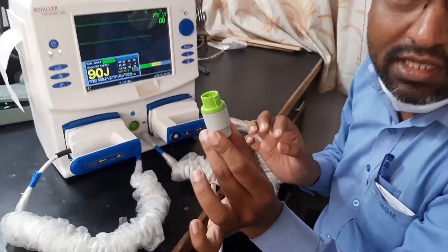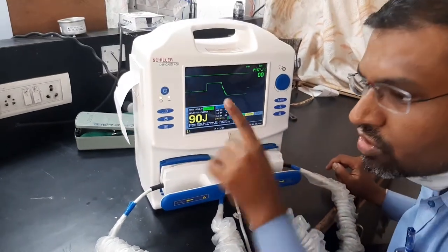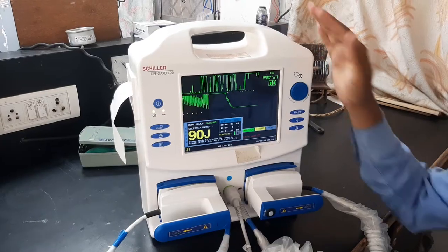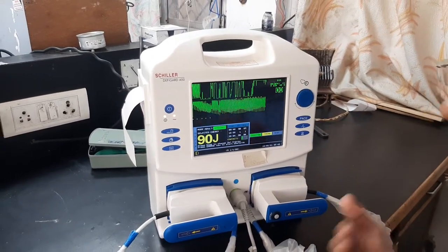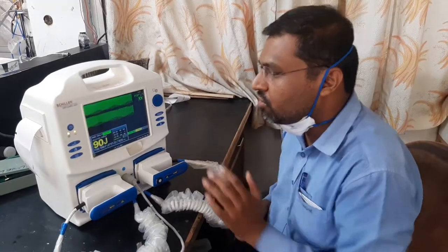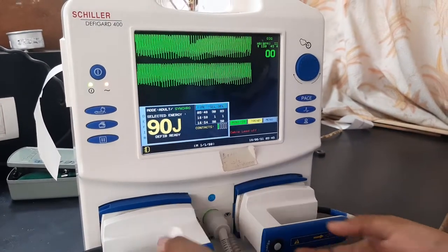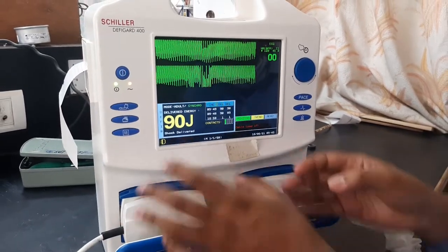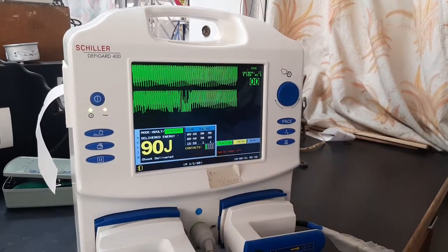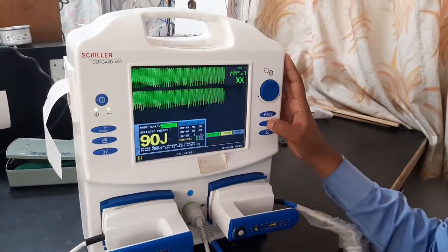For synchronous mode, you connect the ECG electrodes to the patient like this. Once connected, the machine will analyze the patient's heart data and decide whether shock should be delivered. If there is a problem detected, only then the machine will give the shock. In demo — I've charged it, it's ready, I press discharge — you can see these abnormal waveforms; the machine detected a problem and gave the shock. If the patient is stable, the machine will not deliver shock in synchronous mode.